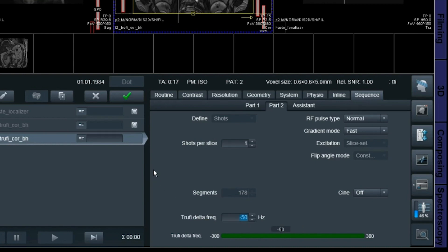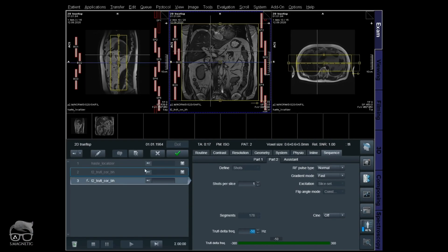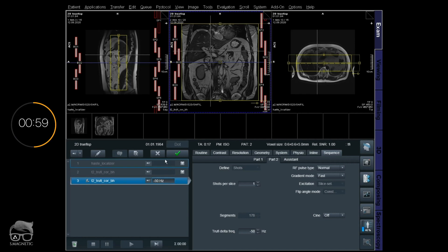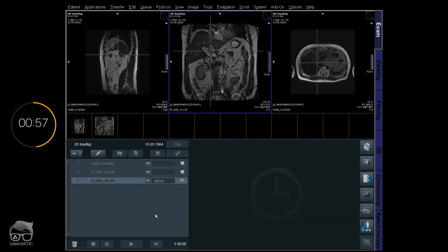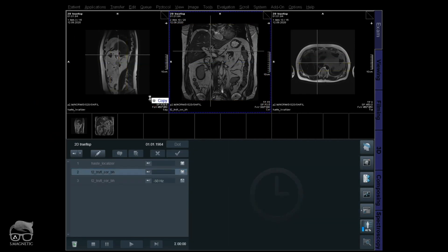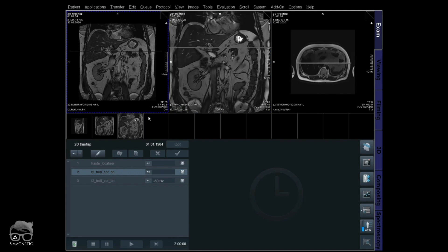Let's test that one. It's going to write minus 50 Hz here so we know. Looking at the new image — there's the artifact still in the middle there, so the artifact is still around.